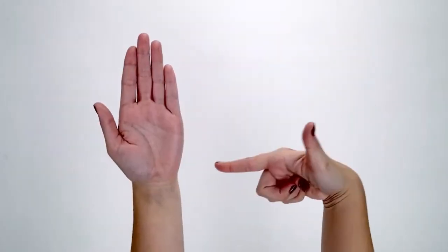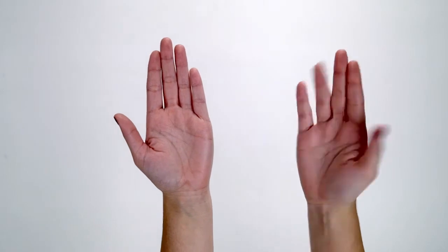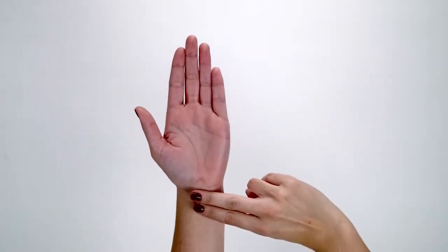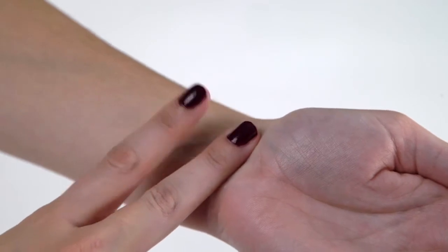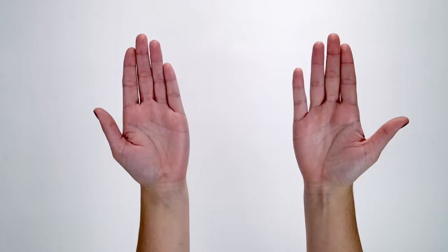Start by finding the right spot on the underside of either wrist. Place your index and middle fingers at the base of your wrist. The area directly next to your index finger is the location where the contact should be placed.